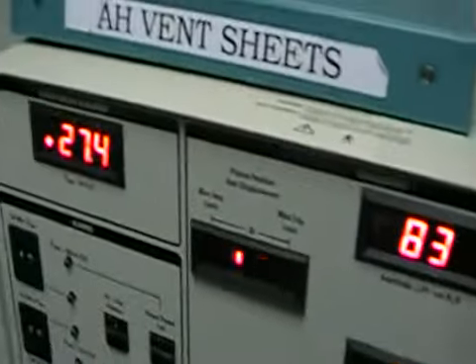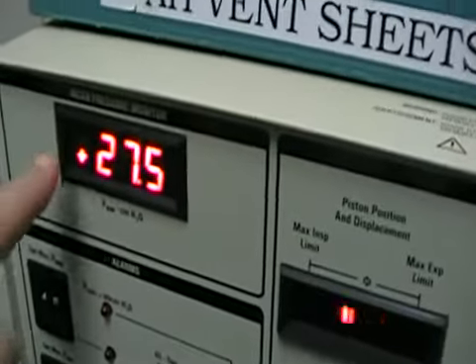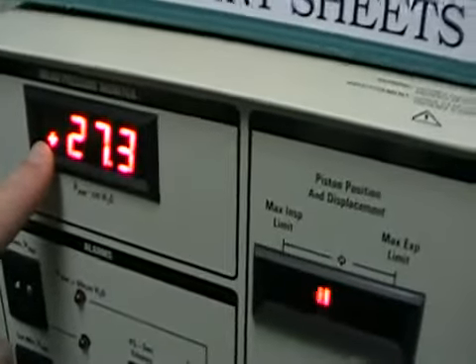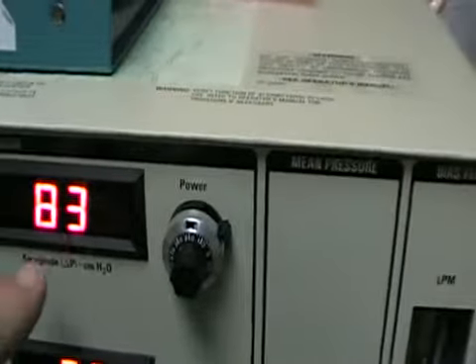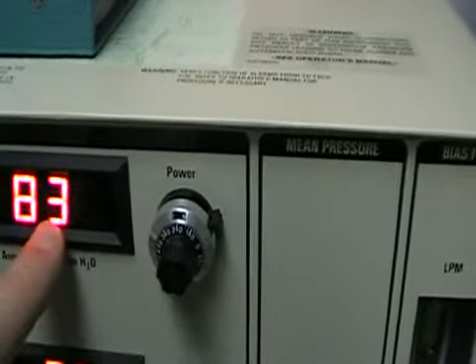To control oxygenation, we go up on the MAP. To control ventilation, we go up on our power.